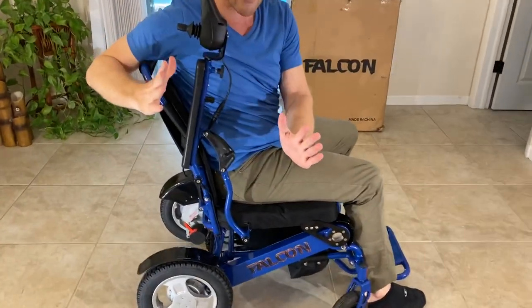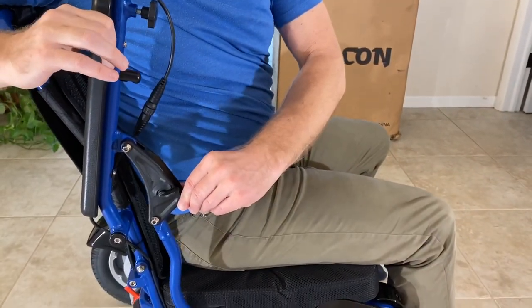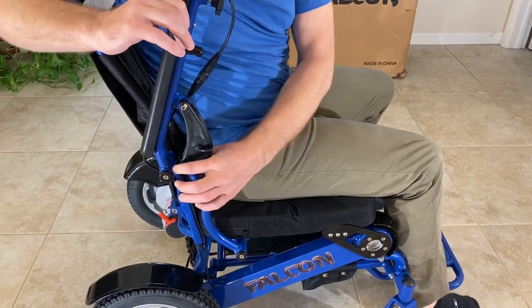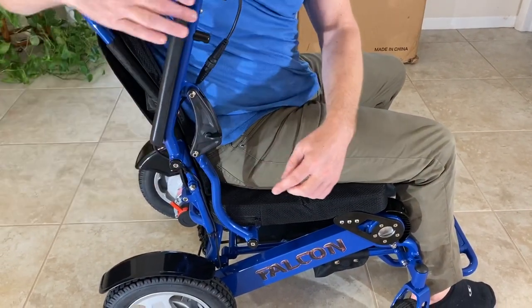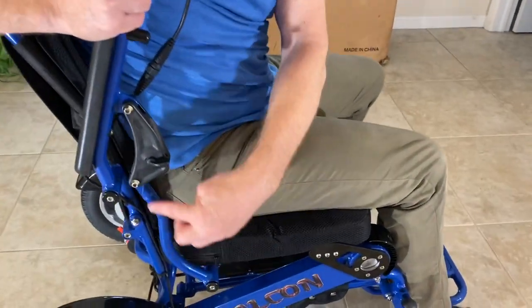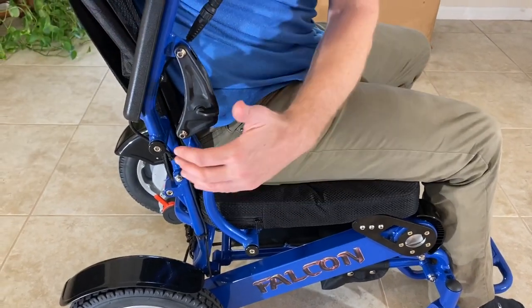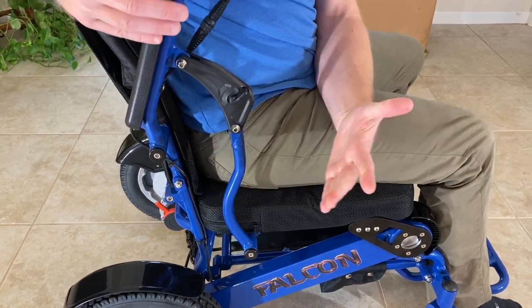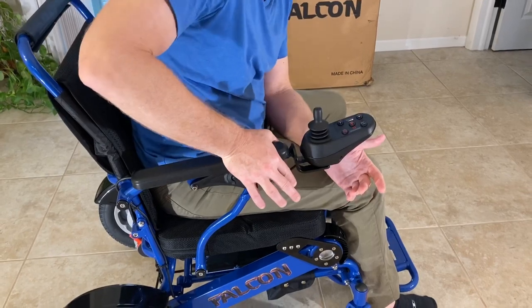When I'm ready to put the armrests back down, this is very important — sometimes we get a little ambitious. See how I push that elbow back towards the actual support on the chair? This isn't going to go down at this point; this is past the point where it will go down. You may think the armrest is stuck — it's not. Just clasp the fingers, pull this forward, and the armrest comes right down.